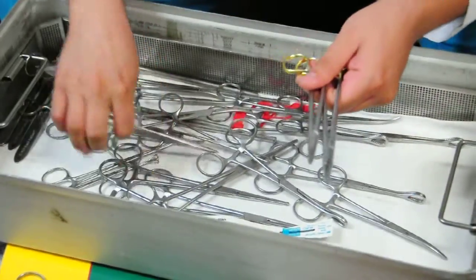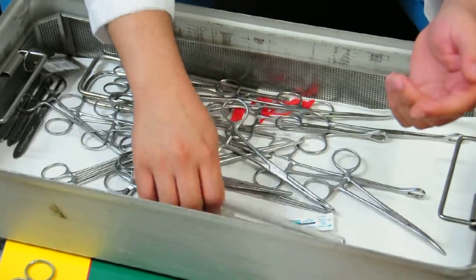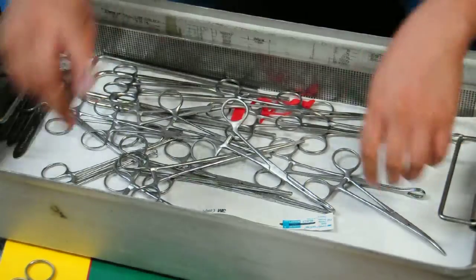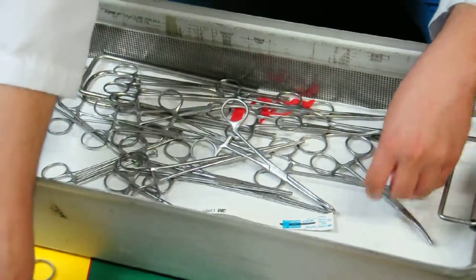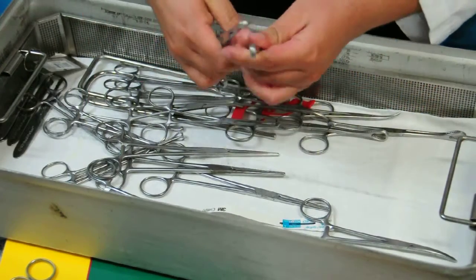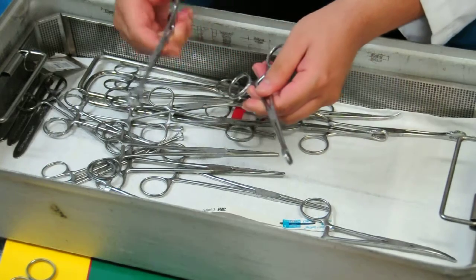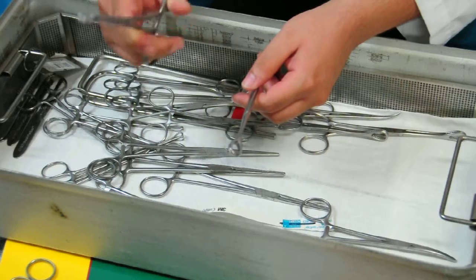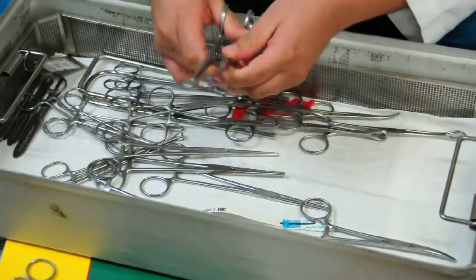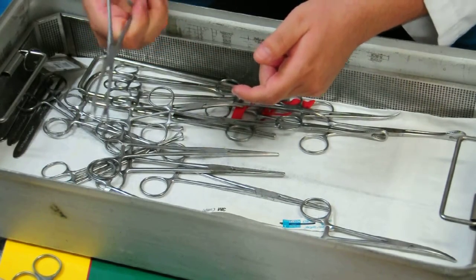These are needle holders — there are different sizes depending on what you're using them for. This is a pool sucker, which you can use to collect blood in large pools, like when you're irrigating. These are ring forceps, which you use to grab the uterus or grab placental tissue. You can also use them as a sponge — mostly we use these for sponge sticks. You can also use them to grab the cervix or to stop bleeding.